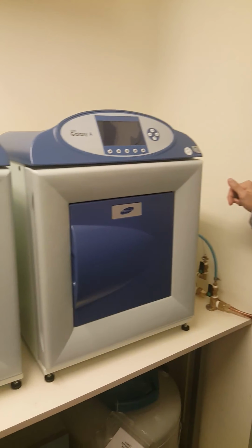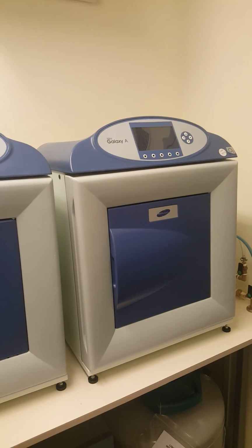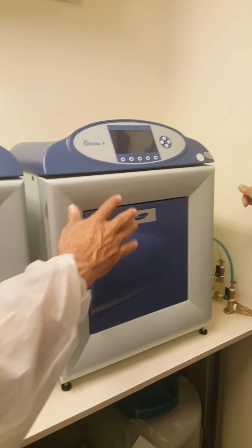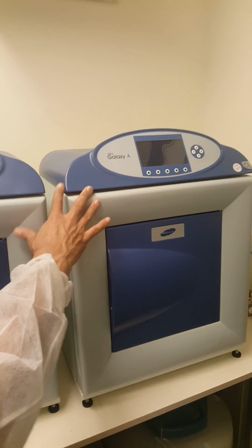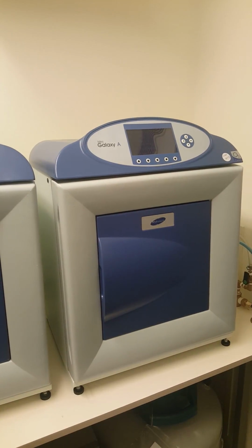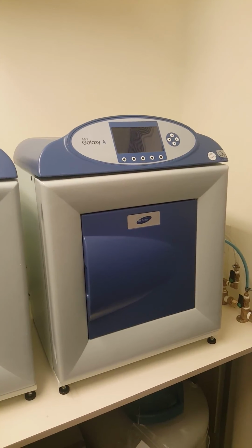It's faster with sperm. With the embryo, you have to be careful because during thawing you can damage the embryo as well. So here we have the second sperm incubator, because we bought a new incubator inside, so we took it outside, but we must keep it in order to have a backup for our study. Okay, so let's get in.